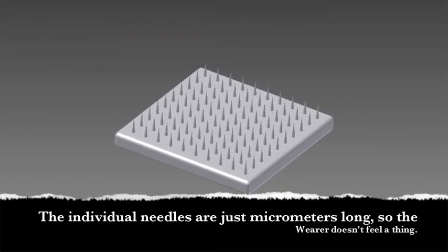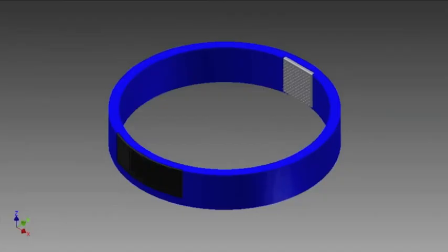Or, better yet, what if the wristband could read blood glucose levels and display them on a clear, readable screen and tell the patient how much insulin to use?